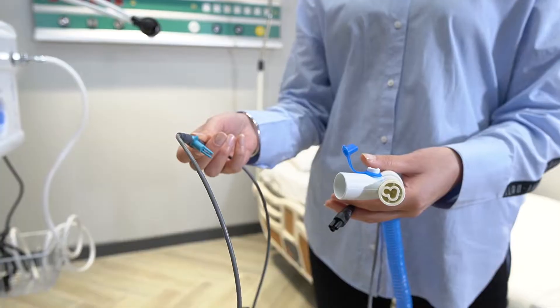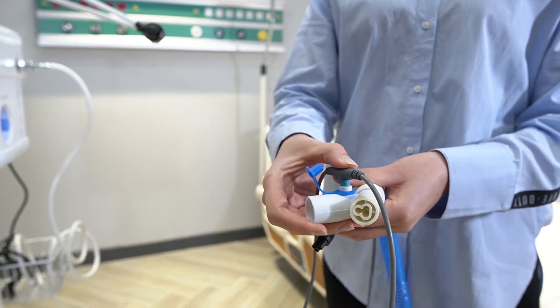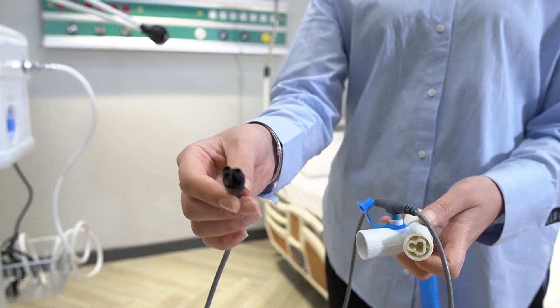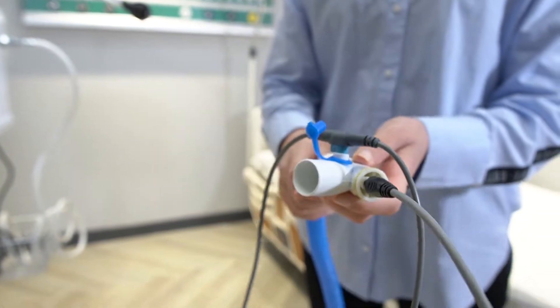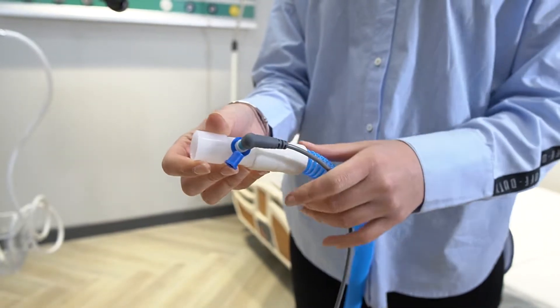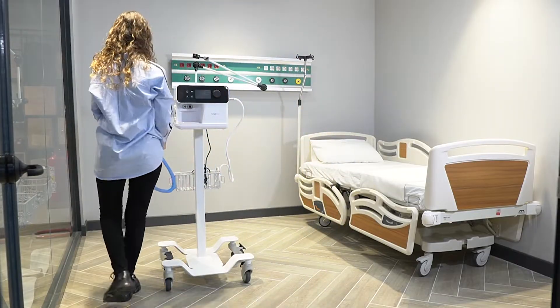At the first stage, the double-geared outlet of the probe is inserted to the T-end of the patient circuit. The end of the heating adapter is inserted to the clover-shaped inlet of the patient circuit. The single-geared outlet of the temperature probe is then connected to the other end of the patient circuit.